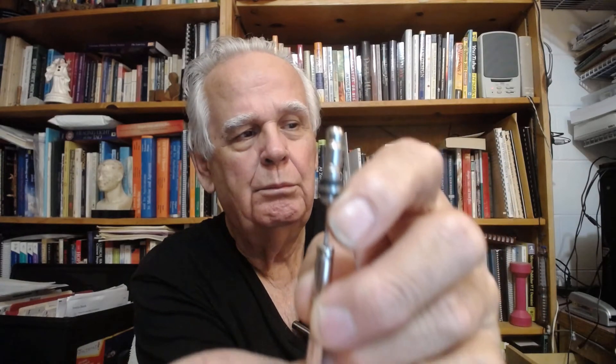And you have to be careful not to contaminate the tip. Then again, hold it up here with your index finger, you see, and then place it where you want it — let's say, right here on the thumb, like that.